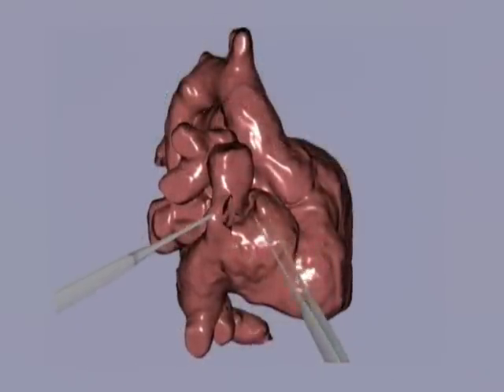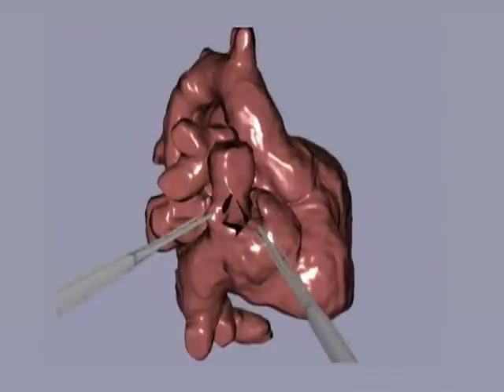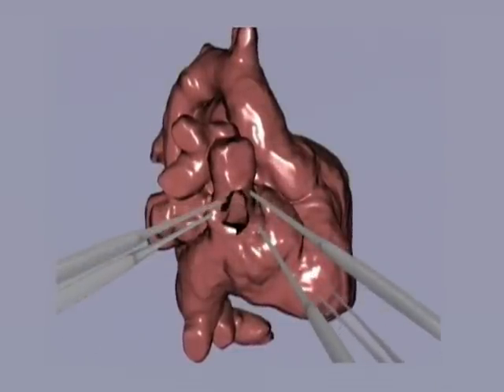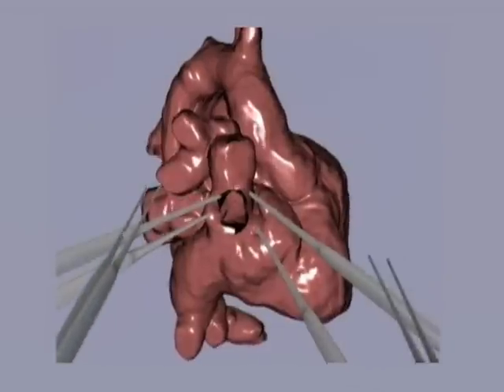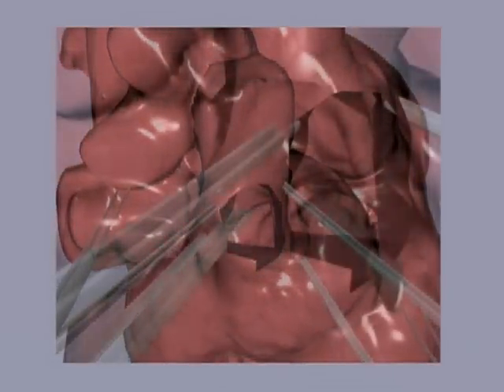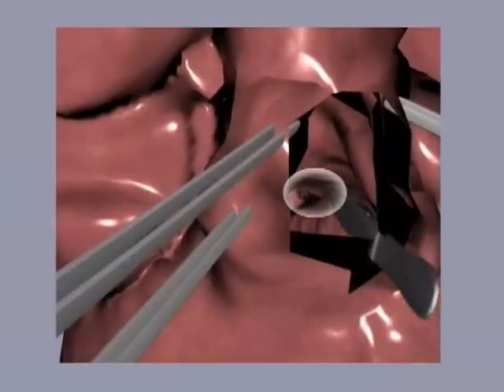A different approach would be to enter through the right atrium. A new incision is made and the tissue pulled aside. We zoom in on the incision point. When grabbing the septum separating the right atrium from the tunnel, an irregularity of the septum is detected.